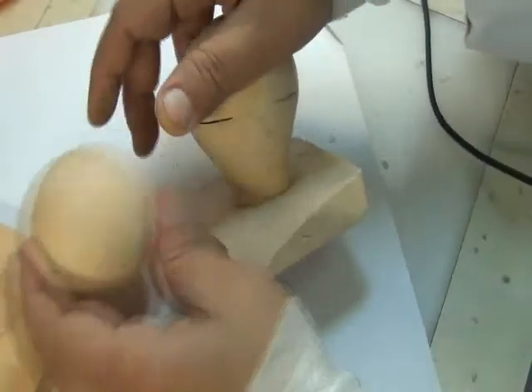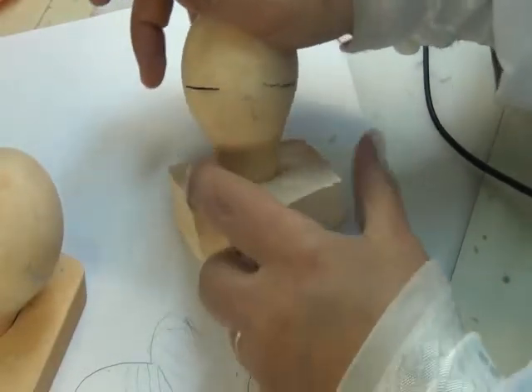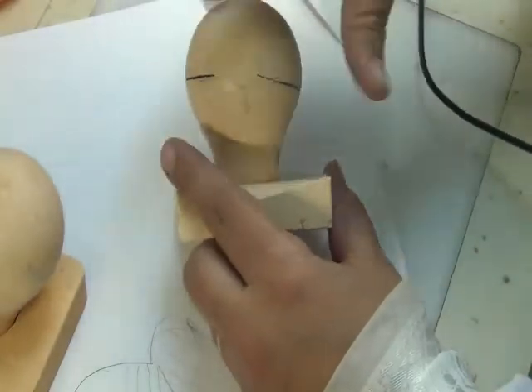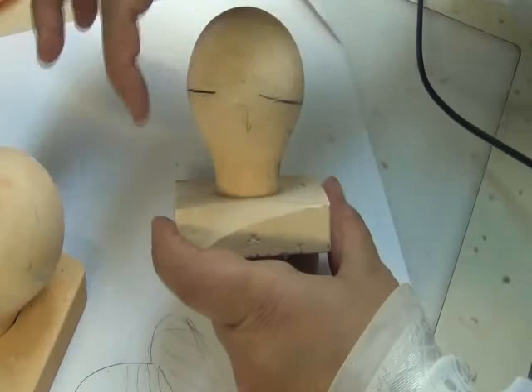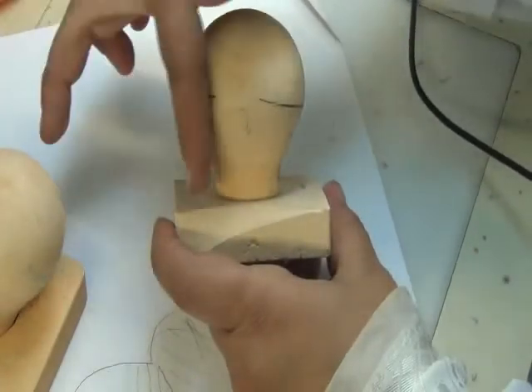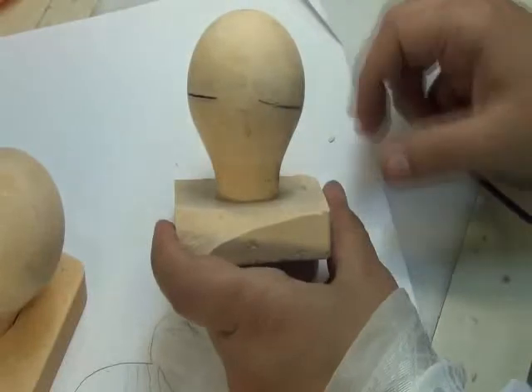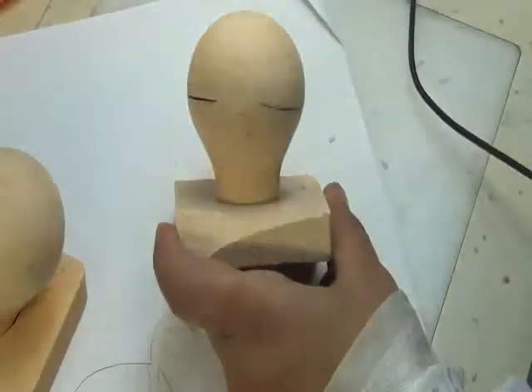First of all, remember that we have blocked this undercut. If we have this tooth, this is the maximum bulge of the tooth, and this is the area away from the maximum bulge in the gingival direction. We call this an undercut. We have blocked this with plaster. This is a natural tooth, and this is the artificial one I'm coming back with. So for the natural tooth, first we have blocked this area using plaster.